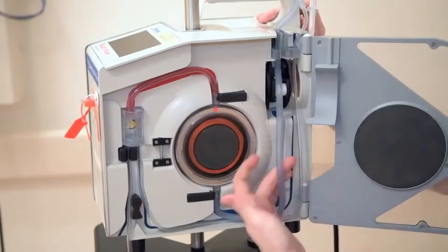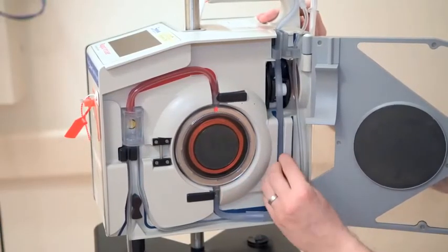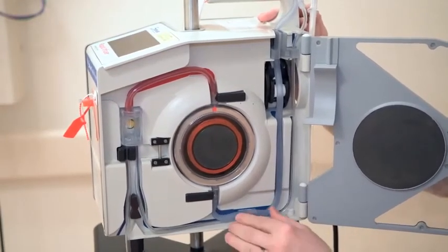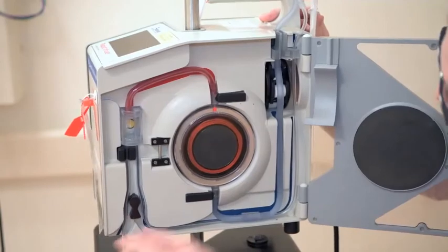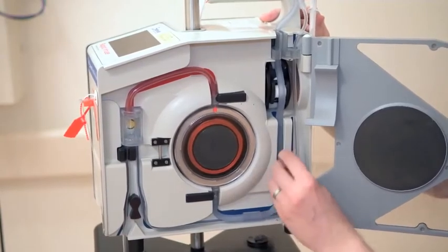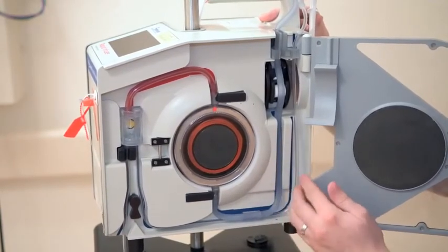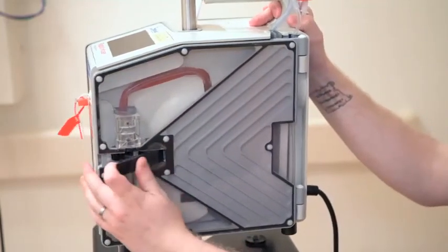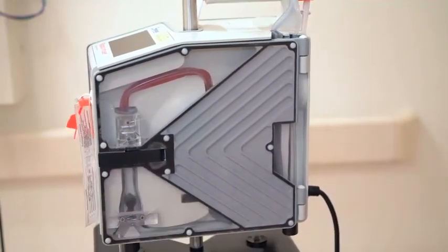You'll see that there's a big blue line and a small blue line on the actual cassette — just make sure that you follow that on both sides, and it's quite nicely painted there for you. Once it's all in place you'll be able to shut the Belmont door; it doesn't click, it just safely secures that cassette in place.